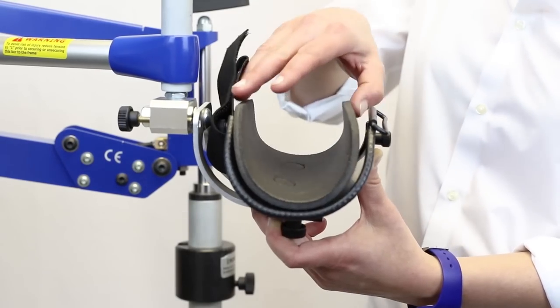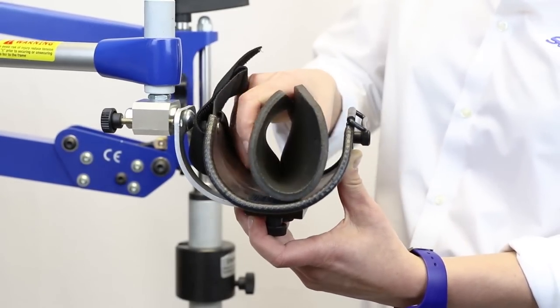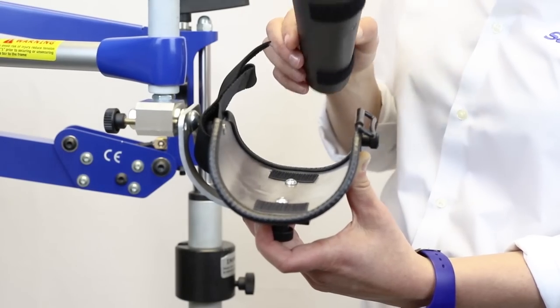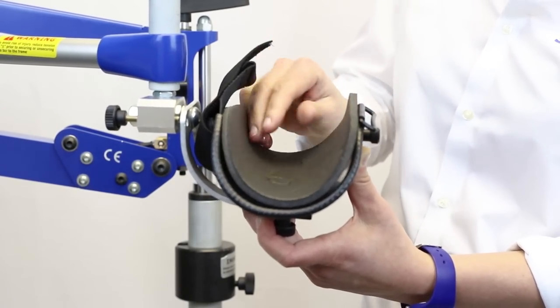For infection control purposes you can remove the liners and put a clean liner back in through the velcro system.